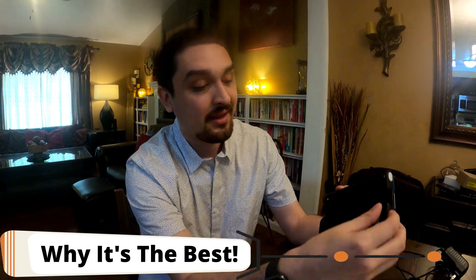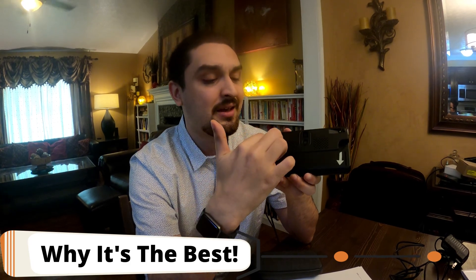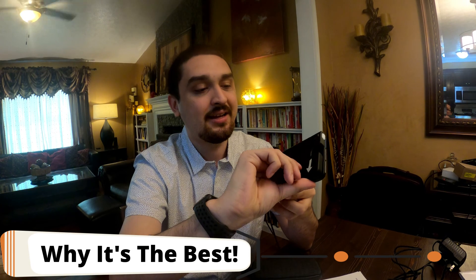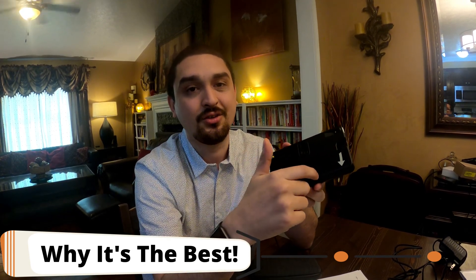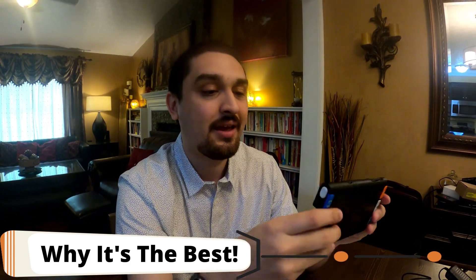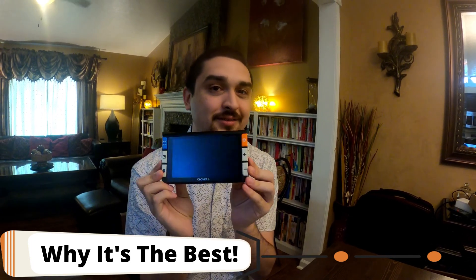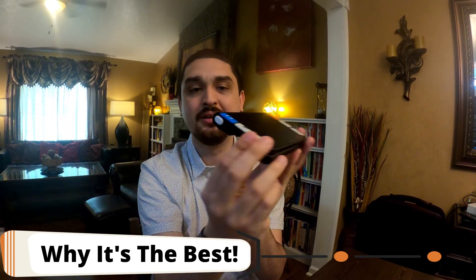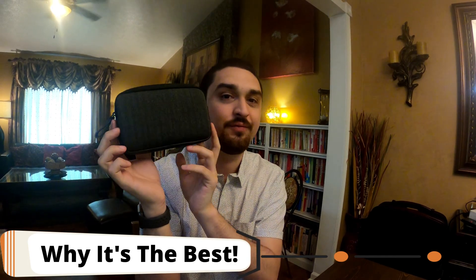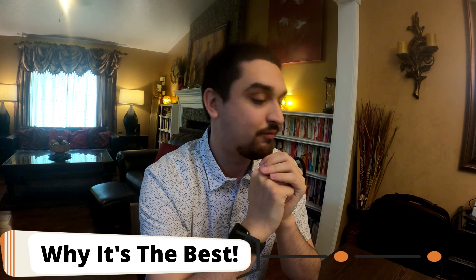And I love this handle. A lot of these, if they have a handle, you have to attach it and rotate it a certain way or it feels very flimsy — as we showed on our Zoomax video. This one feels very solid and I like that the kick-out reading mode is attached to the handle; a lot of them will have separate reading stand and holding handles and it gets cumbersome. I also like the size — their website says this is the smallest video magnifier at six inches and it's super thin. You can see the carrying case is very small, about a small female wallet size, so it will easily fit in your purse or bag. Transportation is very nice on this.